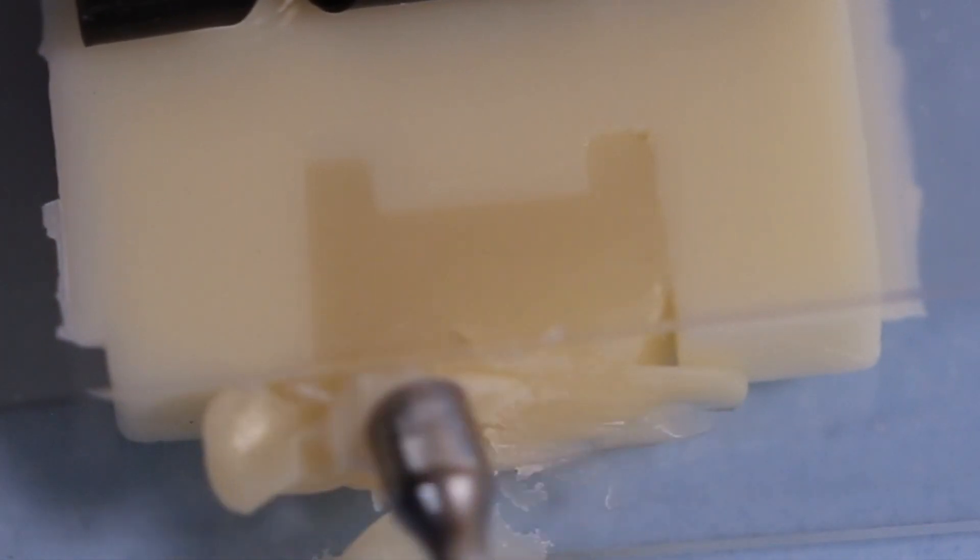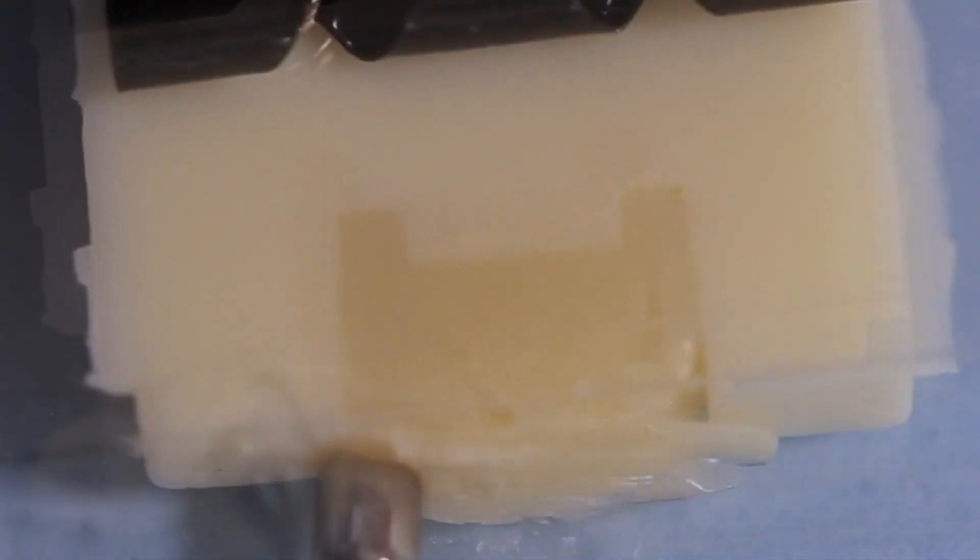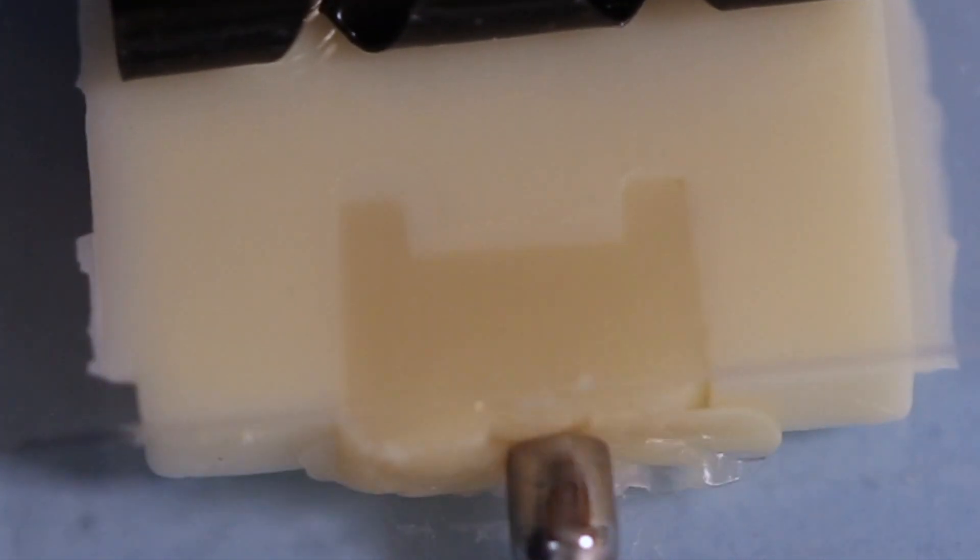And see how when I pull on it, it actually pulls away from the side of the cavity, leaving a void there.